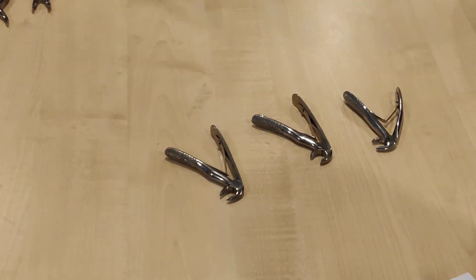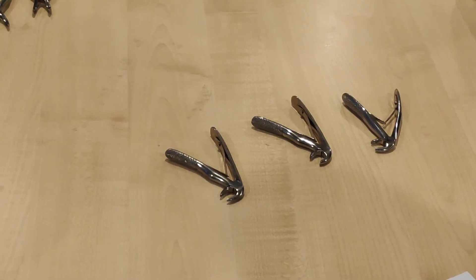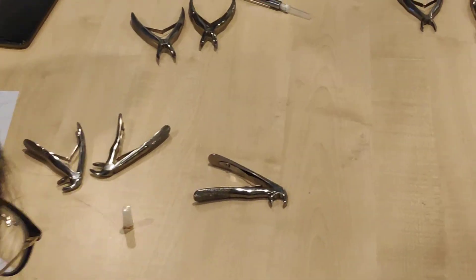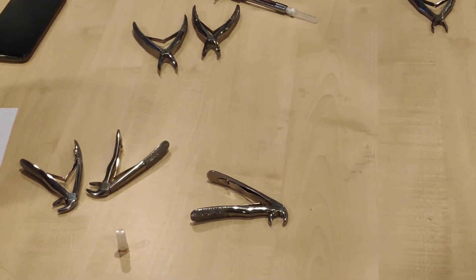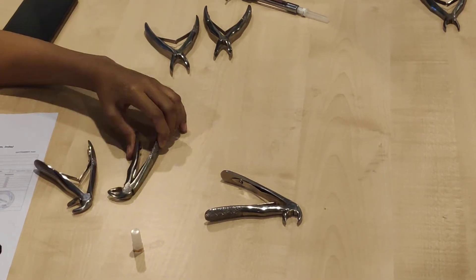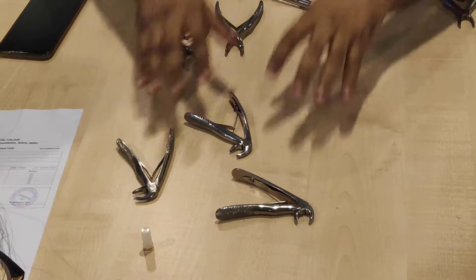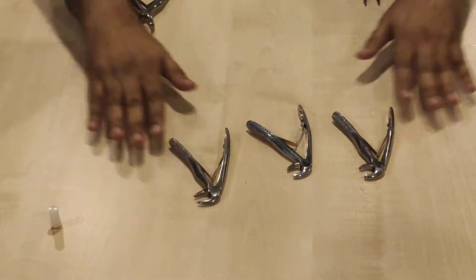Select forceps for 8-5. Extracting 8-5. Very good. 7-3. Very good. Okay, answer? Alright. So we keep this away and come back to the group.